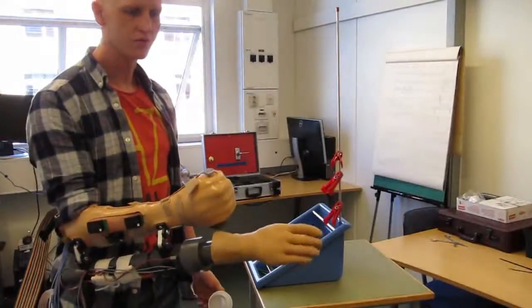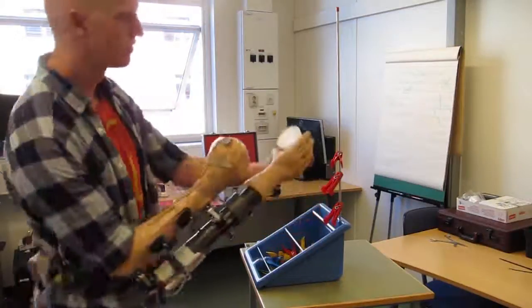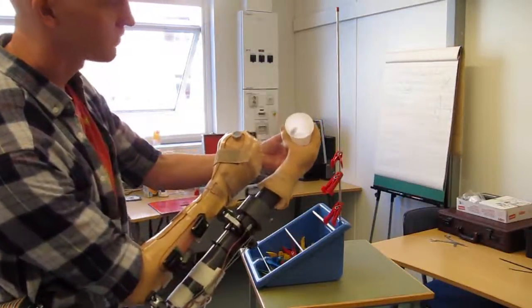But why do we need proportional control? It's nice to be able to do stuff slowly or fast and to grab stuff slowly enough not to crush it.